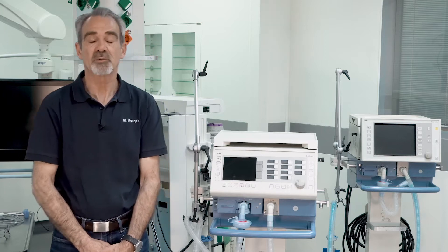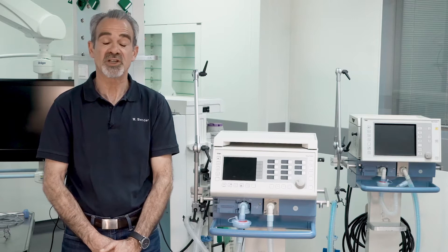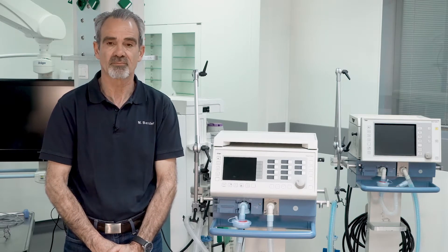In this video we would like to demonstrate how to start the Evita2Dura and to adjust the parameters for ventilation.